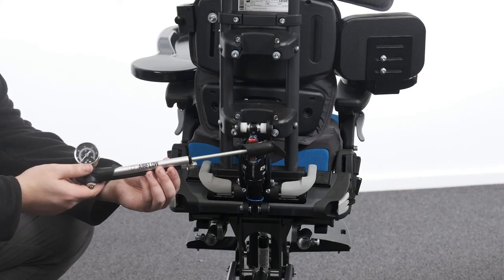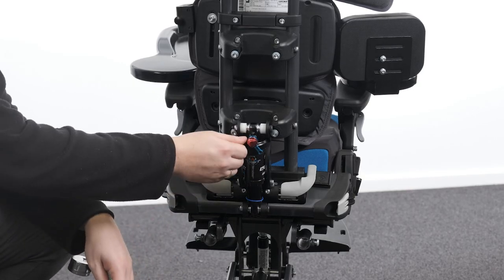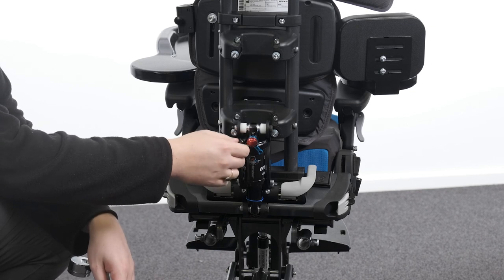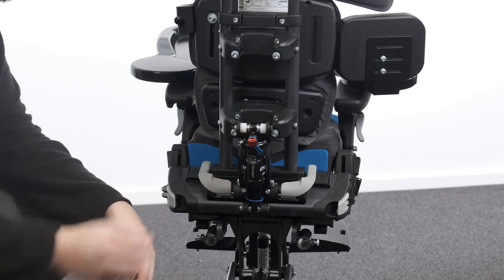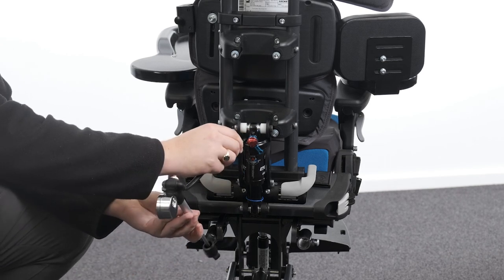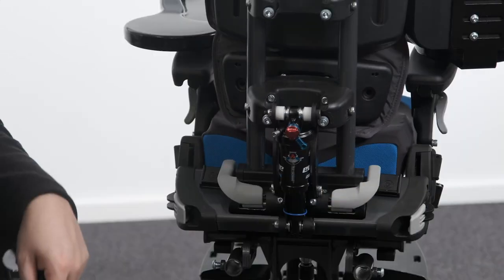Adjusting dynamic back strength. The resistance is adjusted by varying the air pressure and should be determined by the user's weight, seating position, seat design and personal preference. The air pressure is adjusted with an air pump, supplied with every dynamic back, on the main air valve of the dynamic mechanism. Take the dust cap off on the air pump, then pump to the desired strength. When at the desired strength, replace the dust cap.